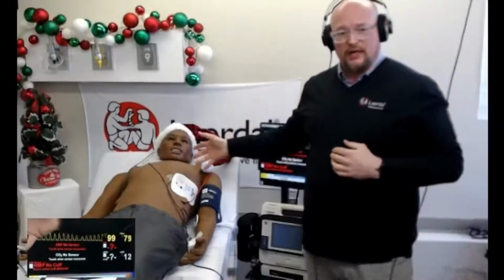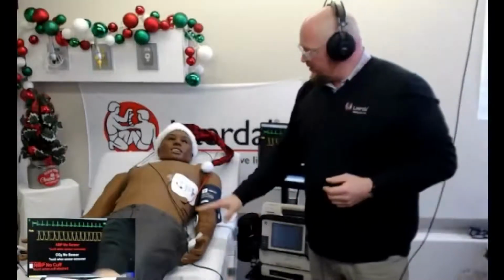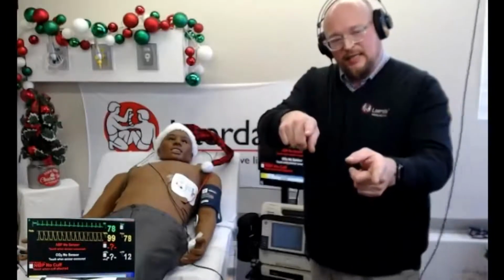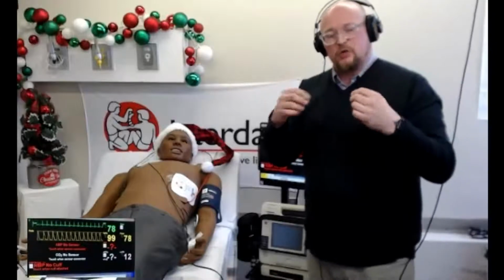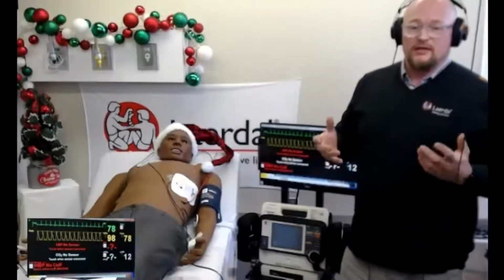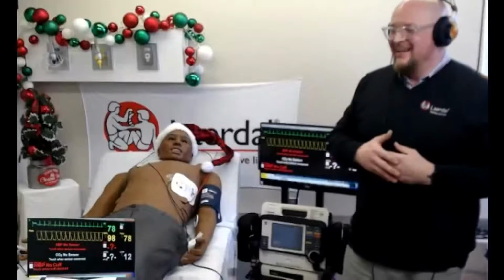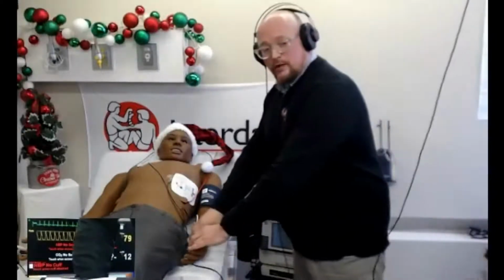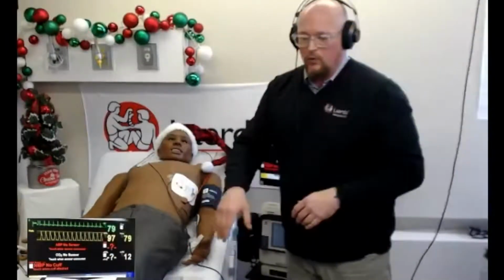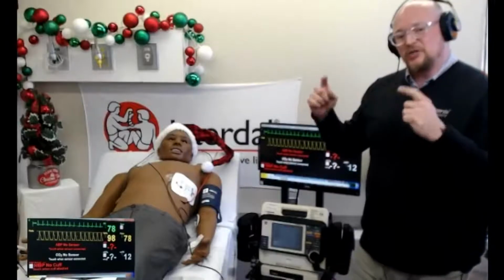I programmed a scenario into this mannequin, and I don't know if all of our simulationists out there know that with everything that we touch, it almost becomes a button, and that button goes back to the Laerdal PC, which can register it as an event. So I can actually make a scenario based on the buttons I push out here, so I don't even have to be in front of the laptop. My students used to love it when I joined them because they thought, oh, you can't do anything, you're not behind the computer anymore. As soon as they figured out that I'm the confederate, I can just hold my patient's hand and use the radial pulse, brachial pulse, femoral pulse, pedal pulses, dorsalis pedis, tibialis pulse. I can use all those buttons, and they can trigger different events inside my scenario.